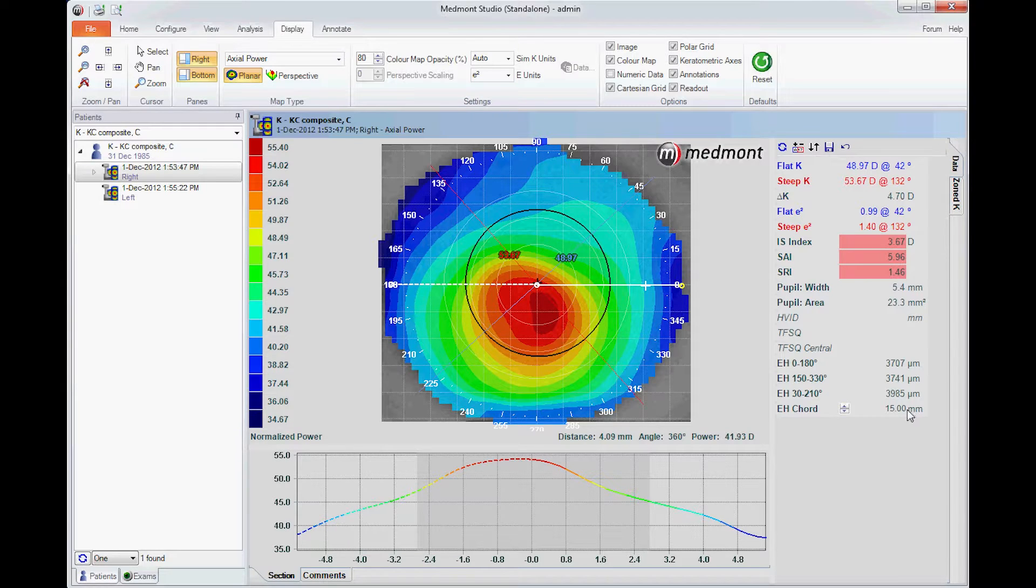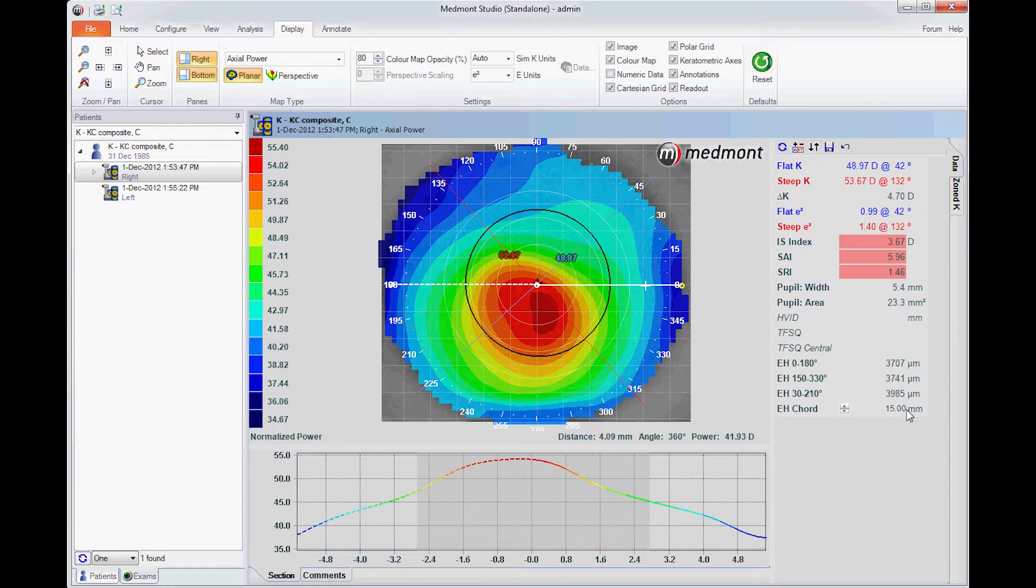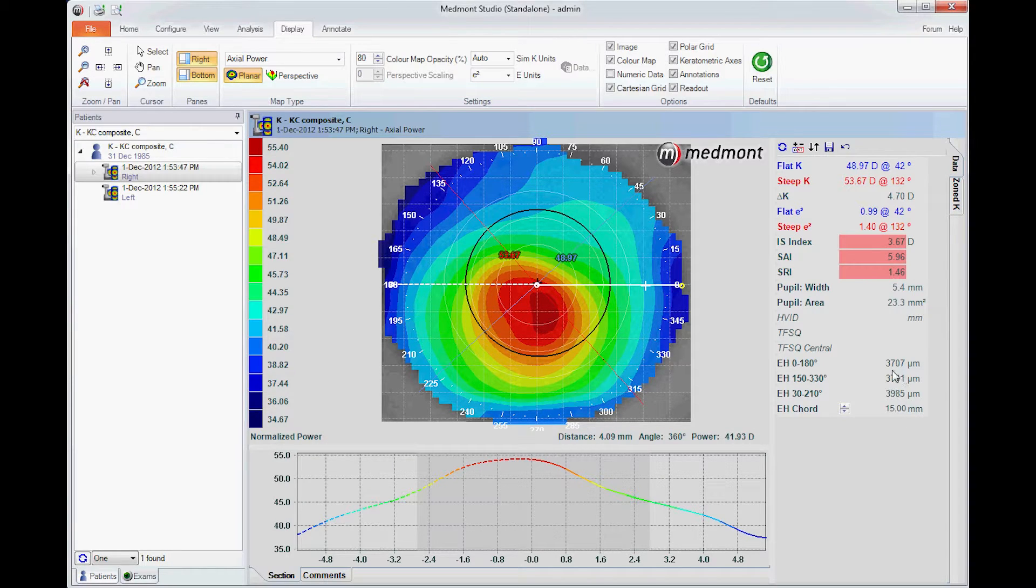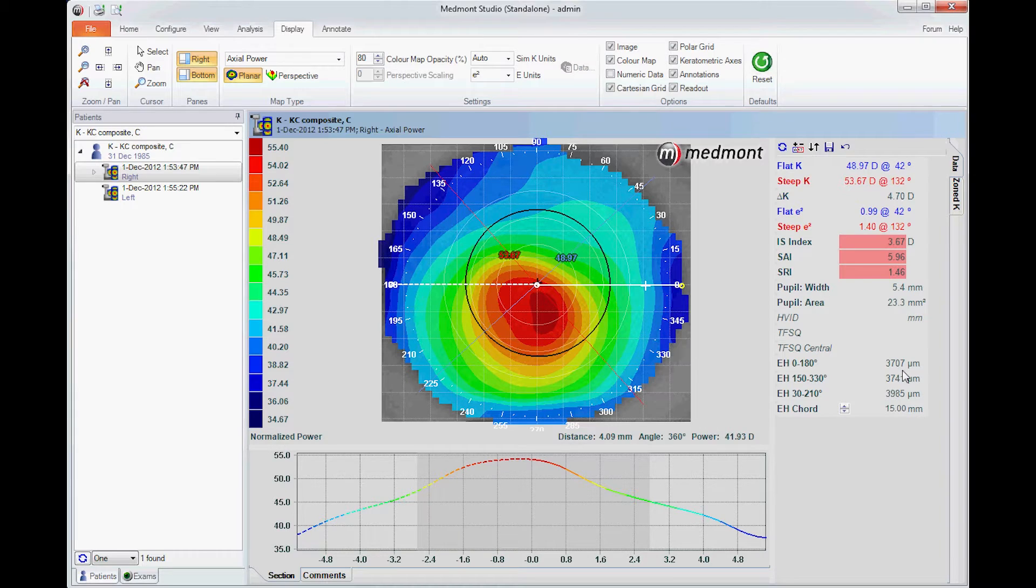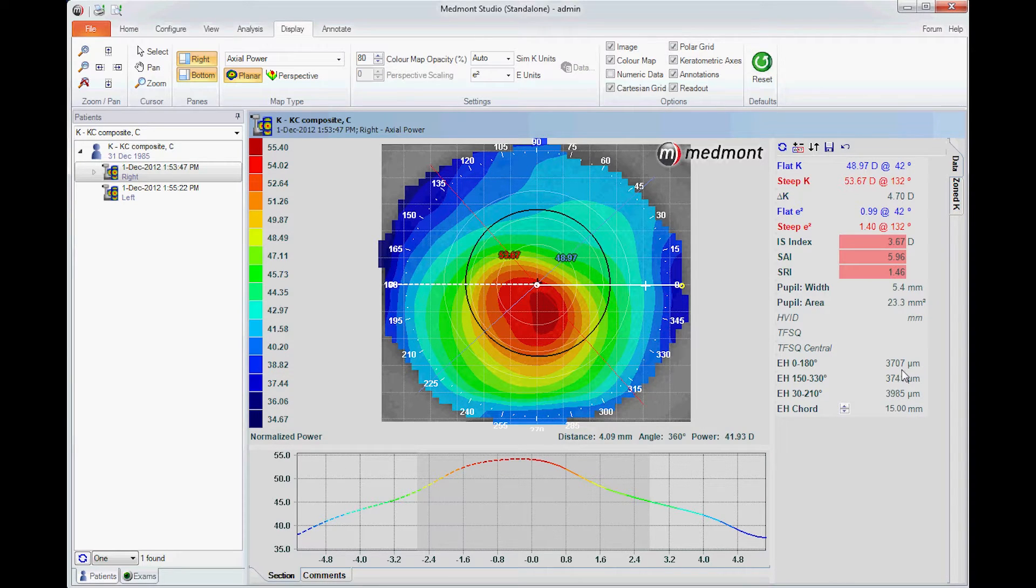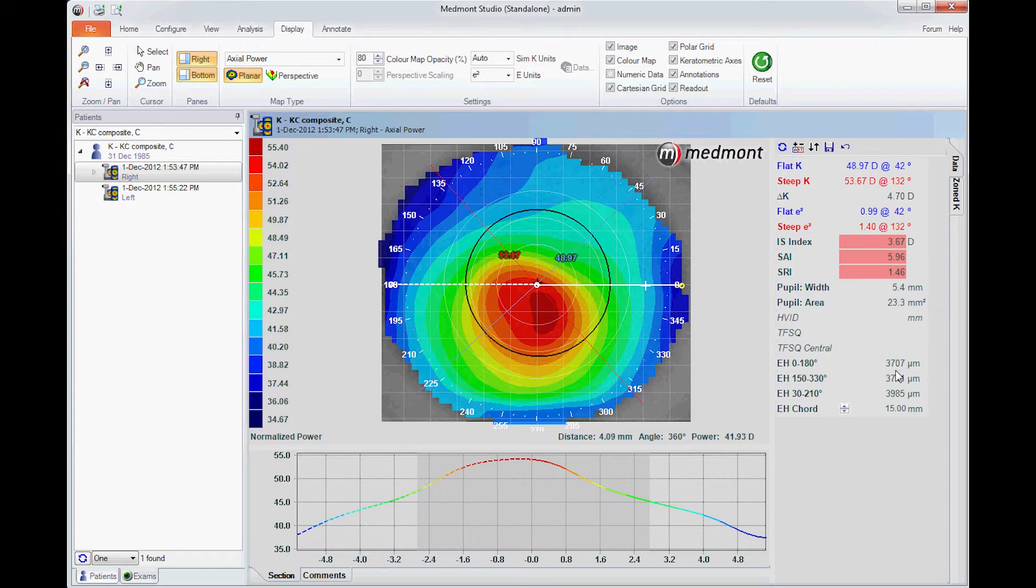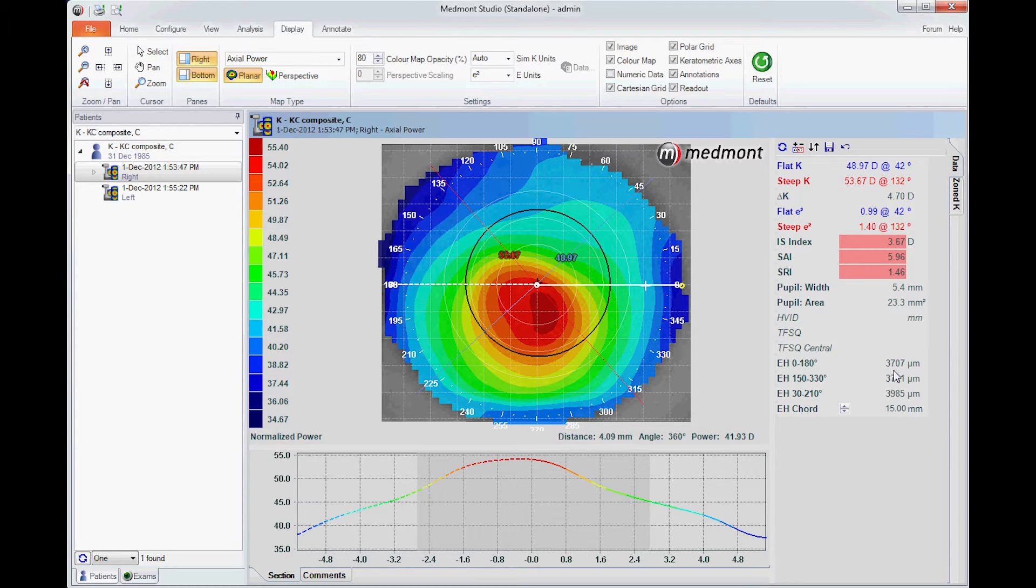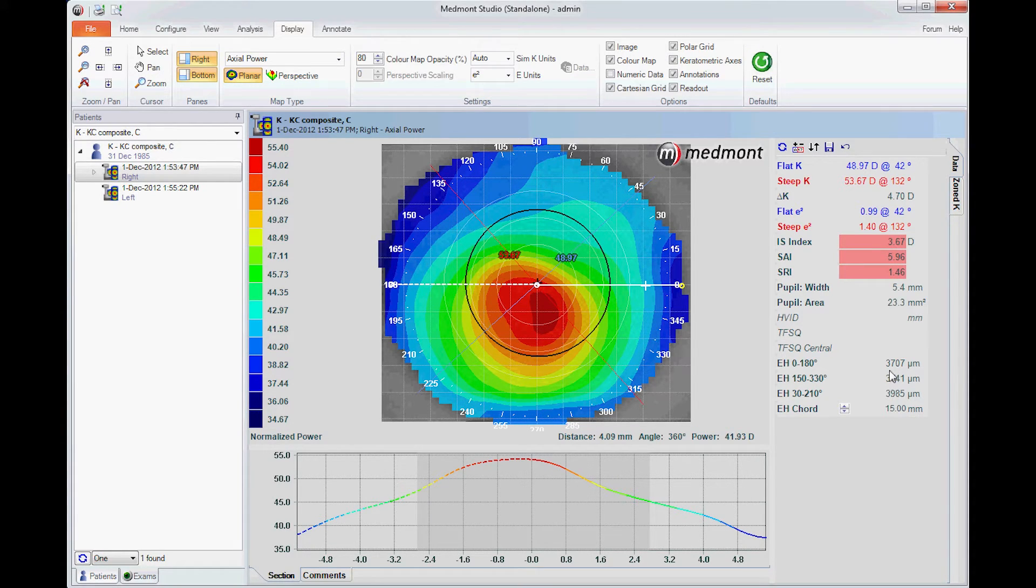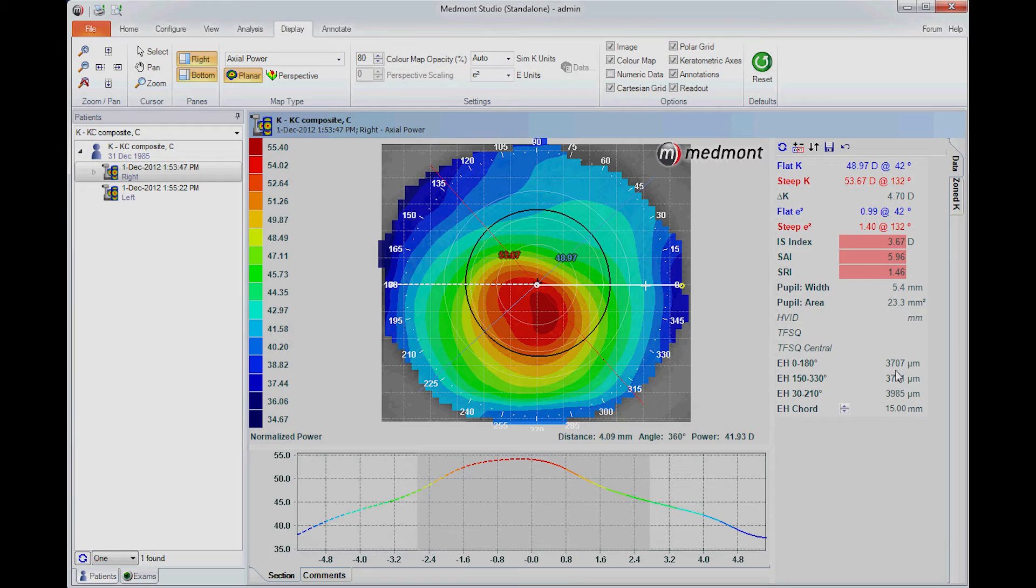Simply enter the diameter of measure for your particular lens at where it calculates its sagittal depth. Then you take the estimated height, in this case across the horizontal meridian, it's about 3700 microns. We would add in the apical clearance of our scleral lens, the amount of fluid between lens and cornea. If we desire to have 300 microns of fluid on insertion, then we would need approximately a 4000 micron initial scleral lens height.